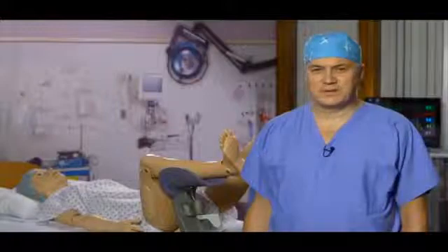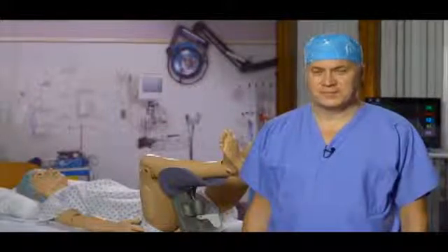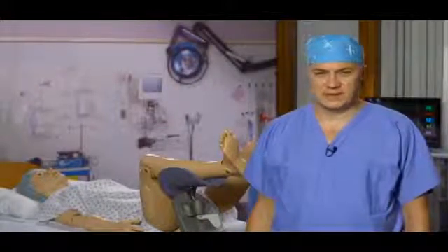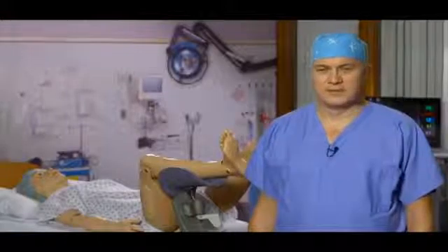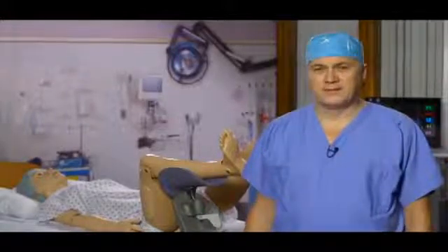This next section will demonstrate Surgical Chloe's capabilities as a teaching aid for vaginal procedures and scenarios. This time we're going to use uterus assembly number one.